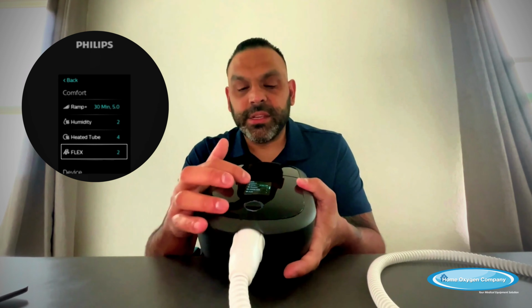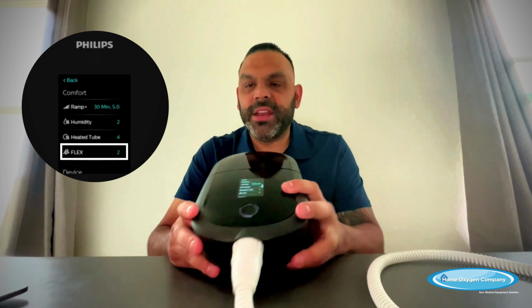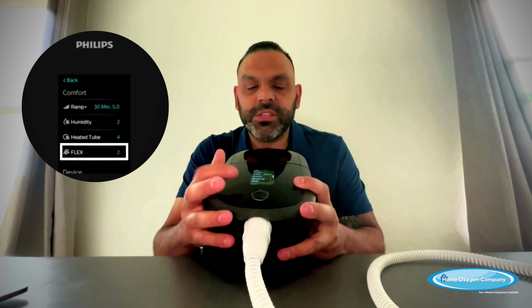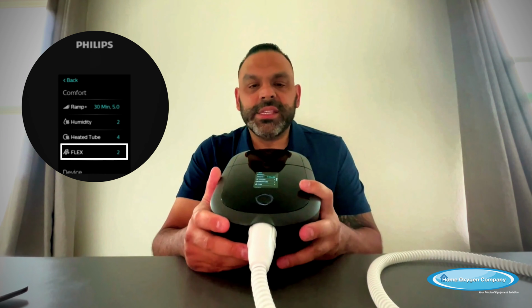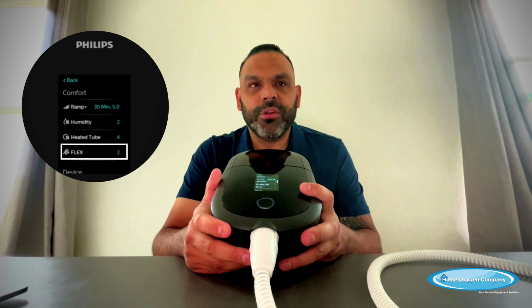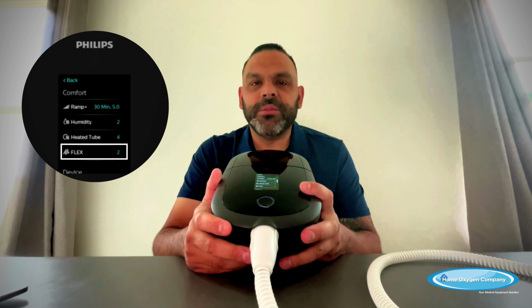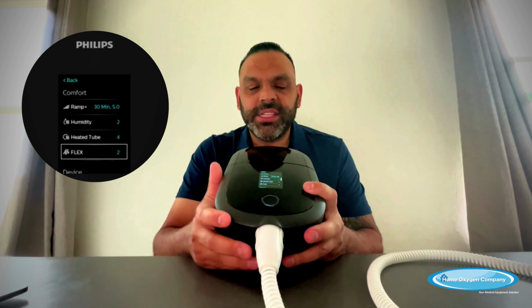So flex. Flex is a confusing one because a lot of people don't understand what it is. What a flex is, is a pressure relief so you're not breathing against the mask so hard.